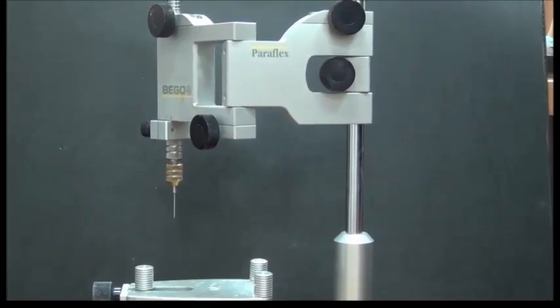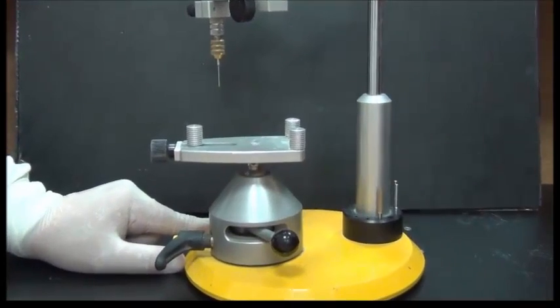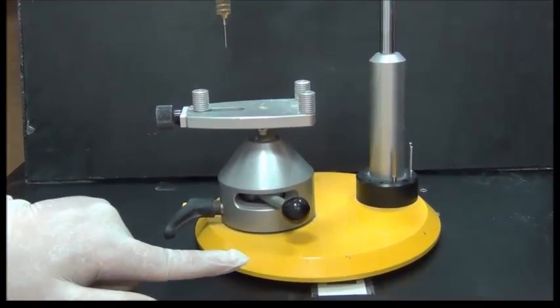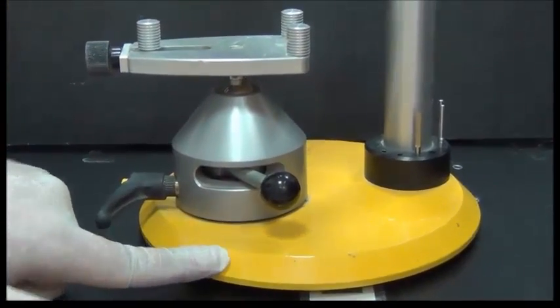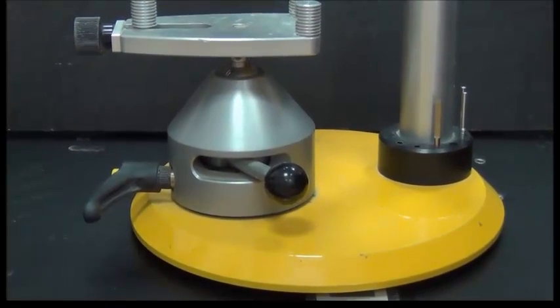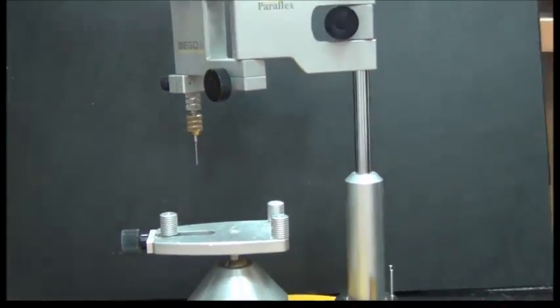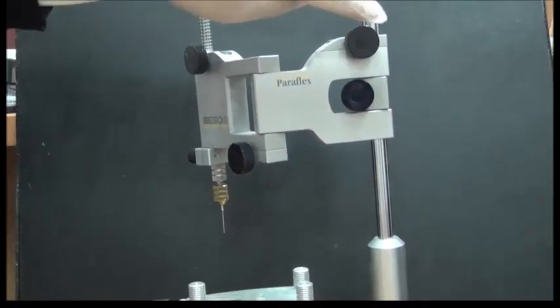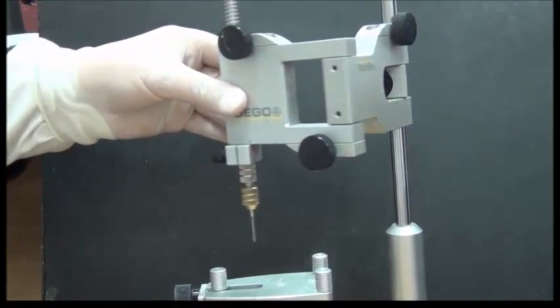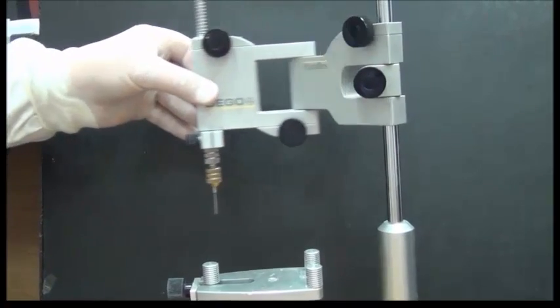Now let's take a closer look at this tool, which is called the surveyor, and its components. We would find this tool composing of the following parts. The first part is the base. This stabilizes the whole tool on a table, and it is horizontal to the floor. Then we have a vertical arm holding the instruments that we will be using. Then we have a horizontal arm that can be moved in multiple planes, in a single horizontal plane, but still we can move it.